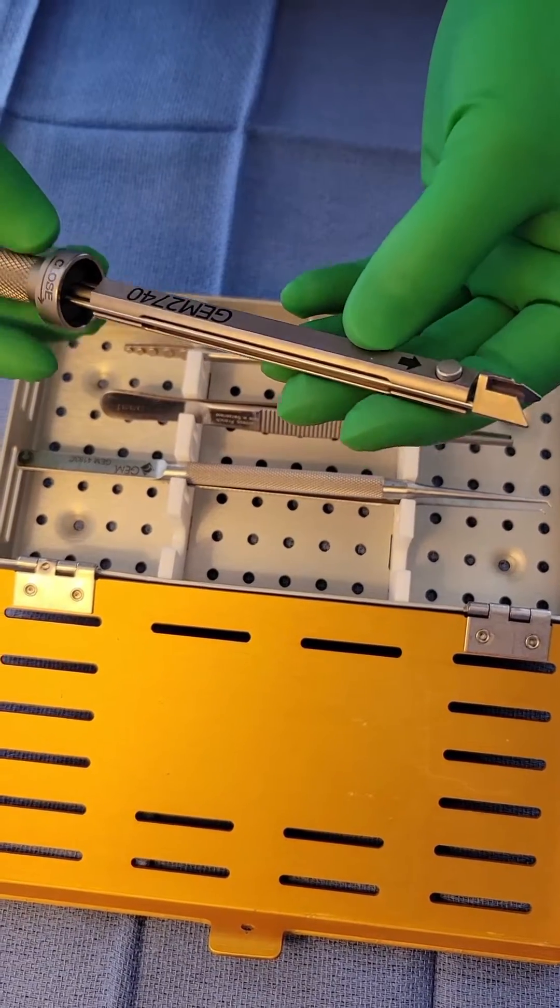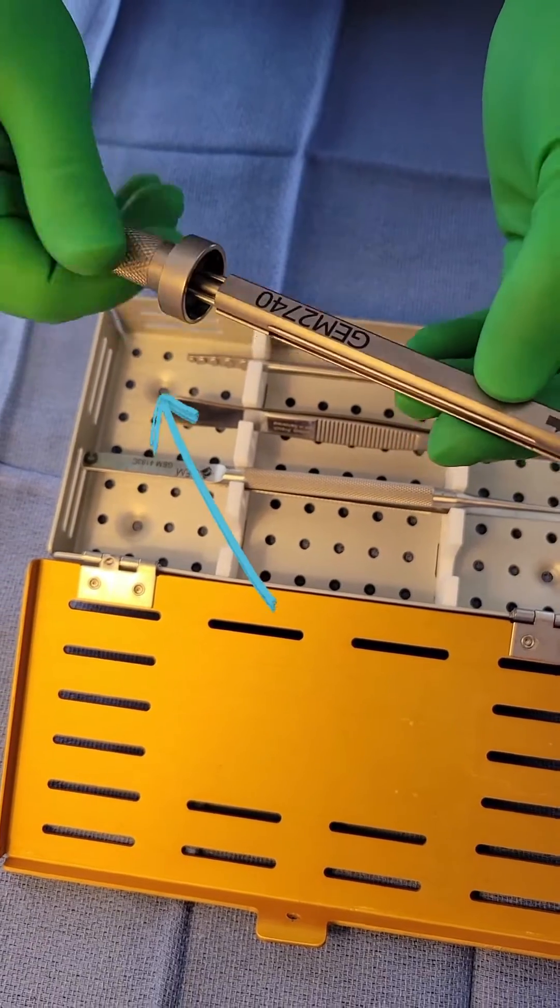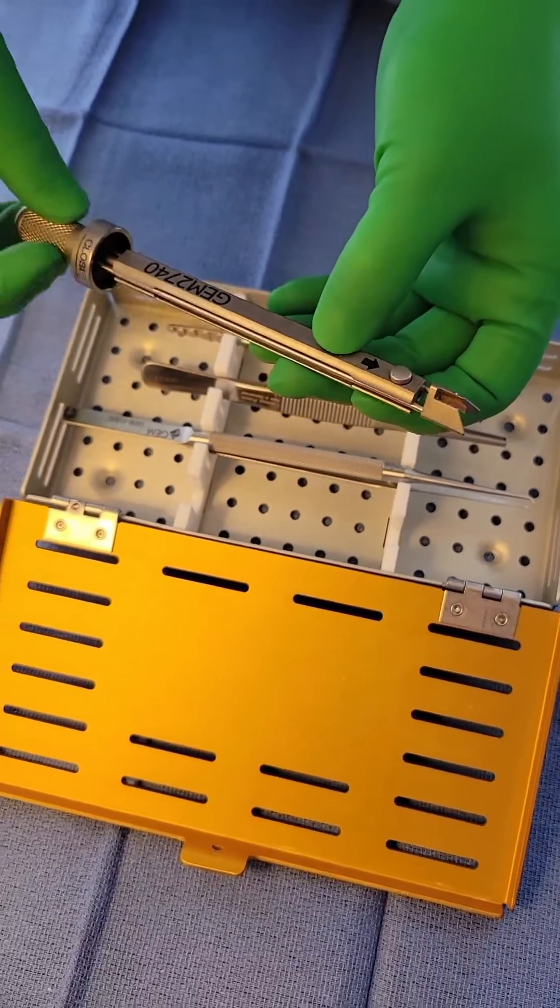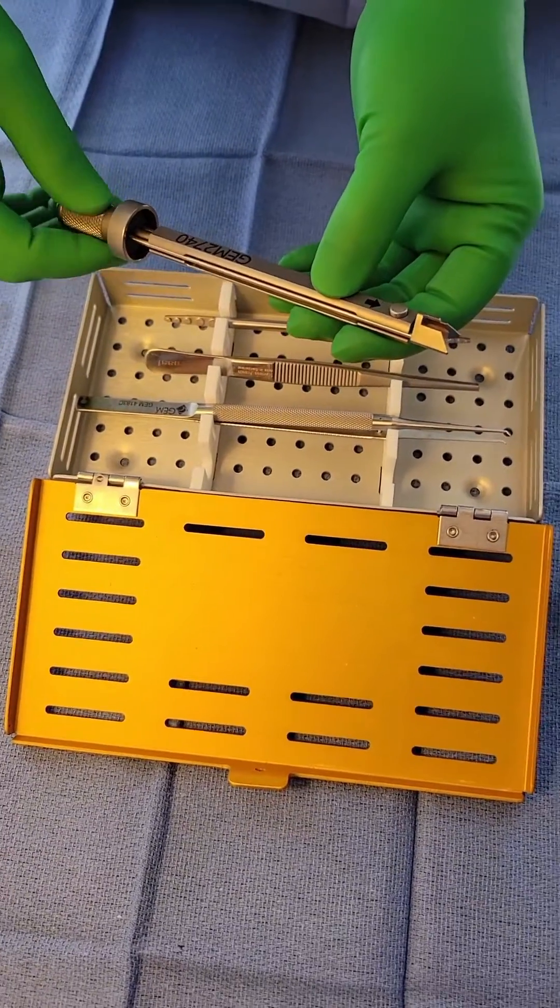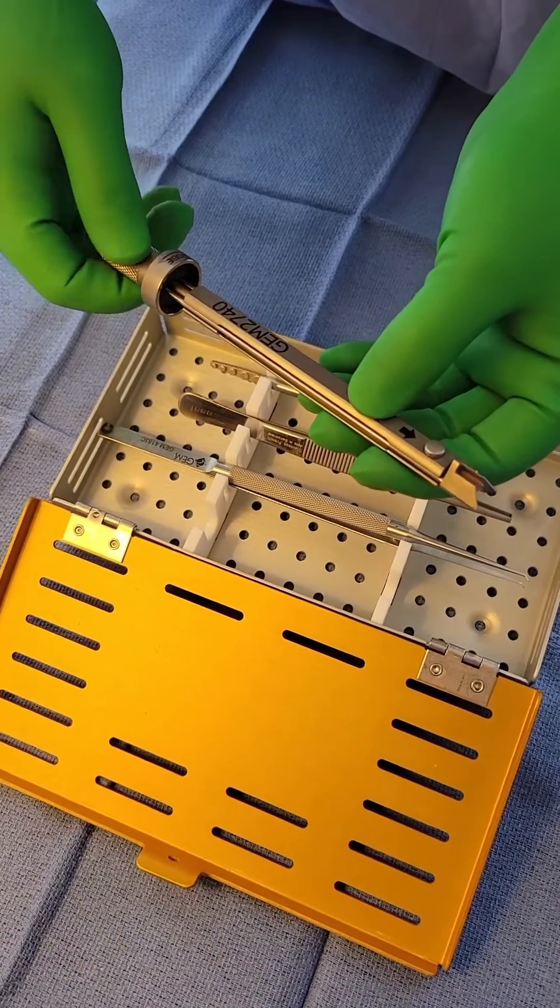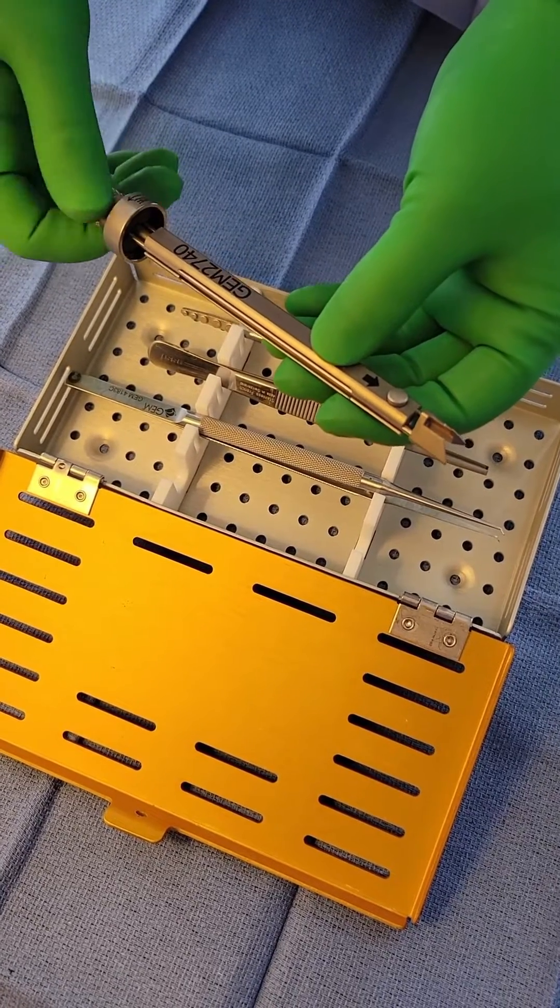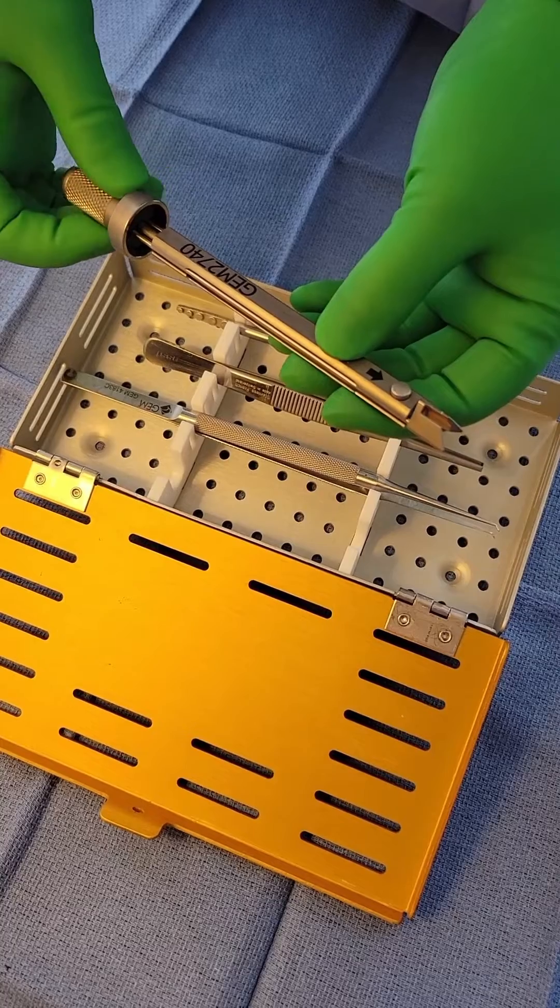When you first get this in your hands, always spin the base like this to close and open this gap up here. You want to make sure that it moves nice and smoothly and does not stick. Imagine the surgeon using this for very delicate work only for it to stick when it's closed and rip whatever they were working on. Not good.